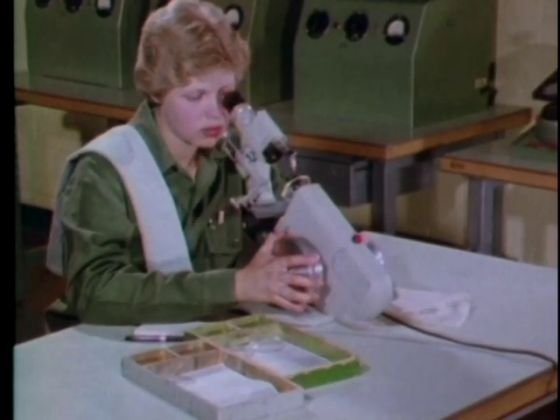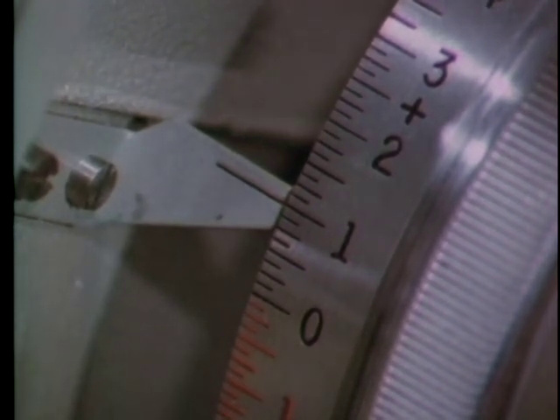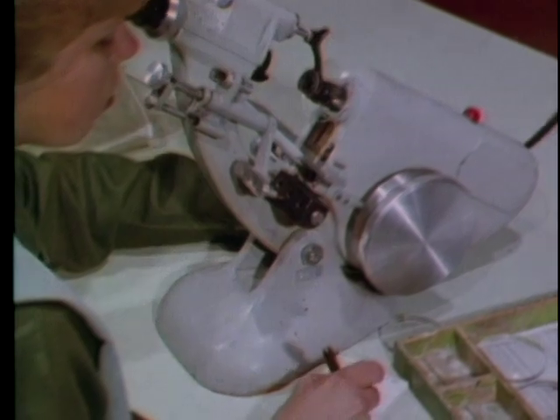Now rotate the power wheel in the same direction as before until the thick lines come into focus, noting how far you move it. In this case you've gone from plus two to plus one — or one diopter in the minus direction. Write this down as the cylinder power in minus cylinder form.